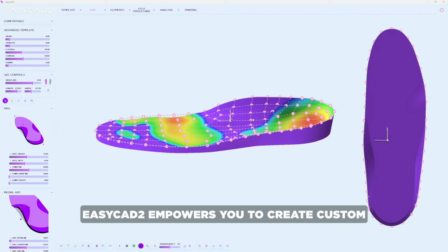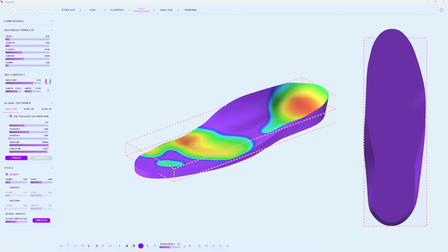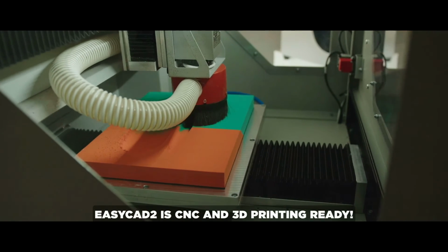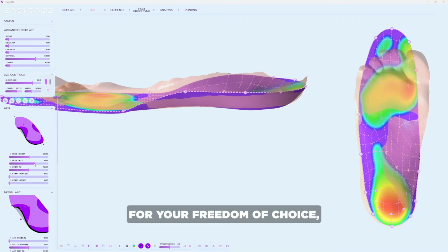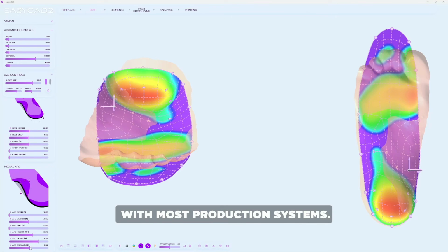EasyCAD2 empowers you to create custom orthotics with unmatched accuracy and speed. EasyCAD2 is CNC and 3D printing ready. For your freedom of choice, EasyCAD2 is compatible with most production systems.